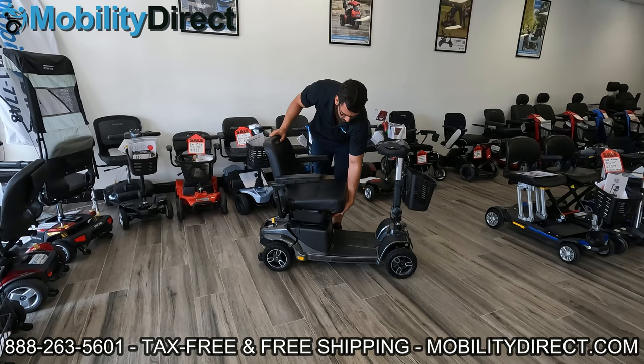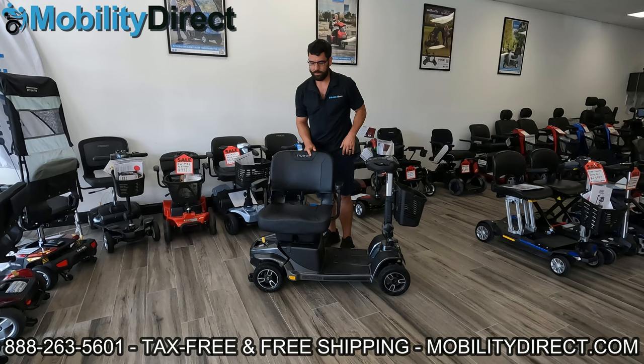The seat is not rotating freely — you have to use that rotation lever, and it locks into eight different positions.